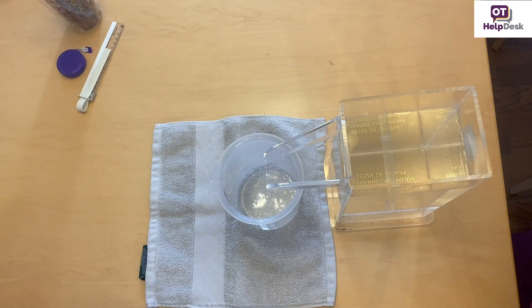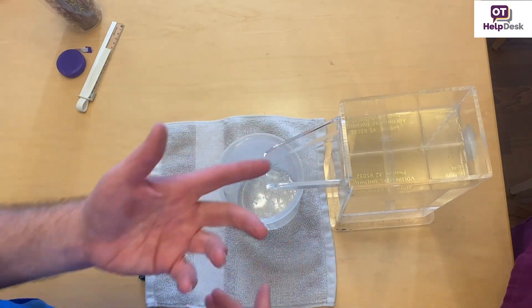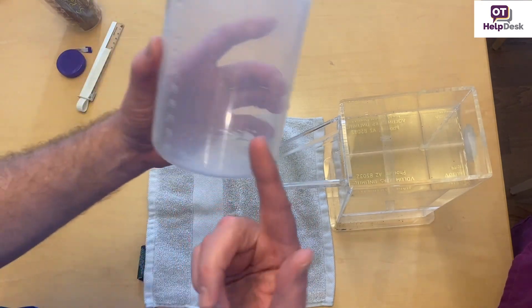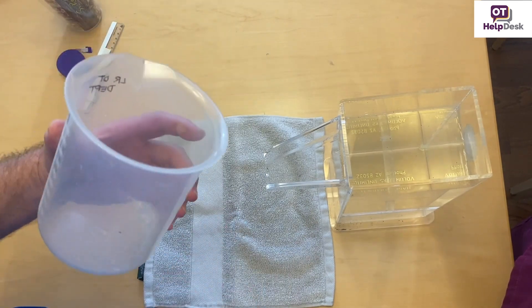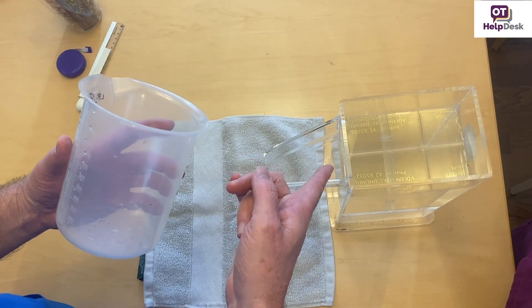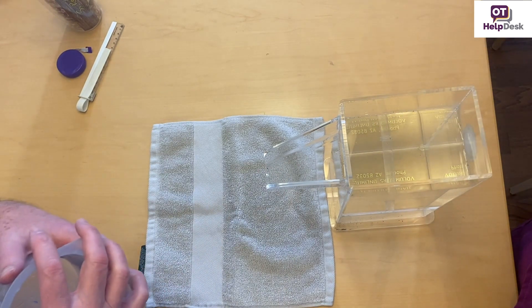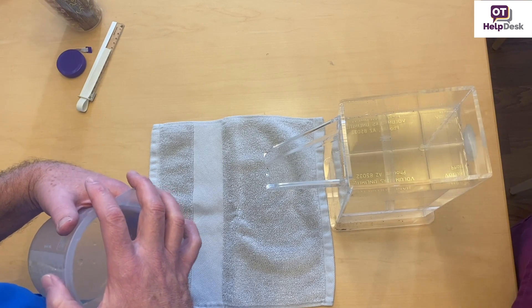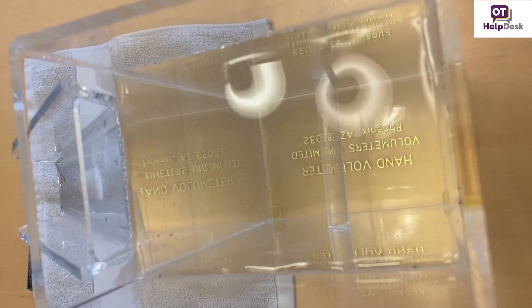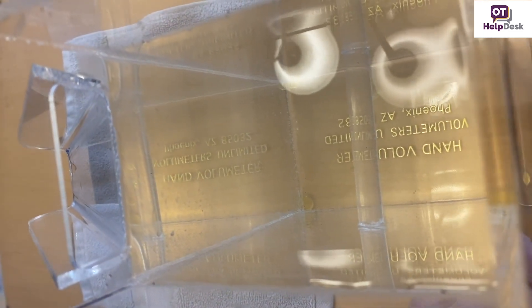Can you explain the purpose of why you would calibrate it before doing that? Well, it has to be done the same way every time. You're going to do right and left, so by bringing it up right to the edge, you'll get an accurate measure of displacement. If you were to do it differently between the right and the left, you could actually change that in terms of the milliliter. So calibration means making sure the water is right up to the edge — it's on a flat surface and it's ready to go.